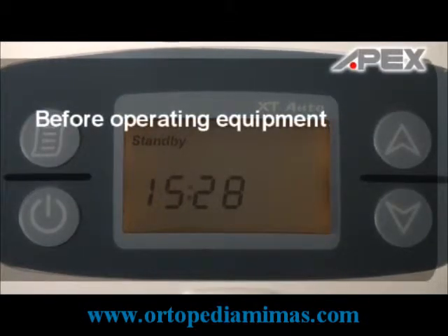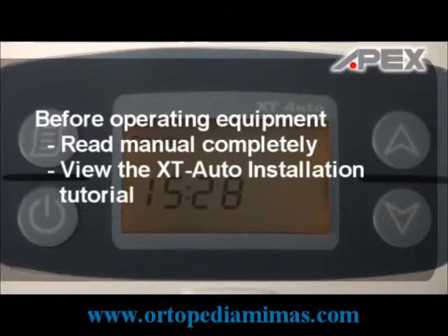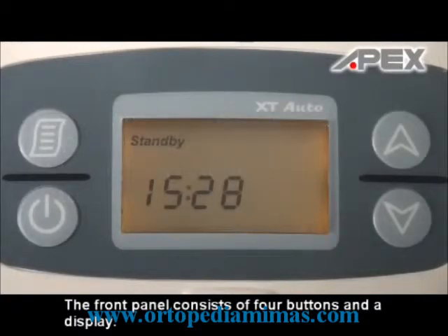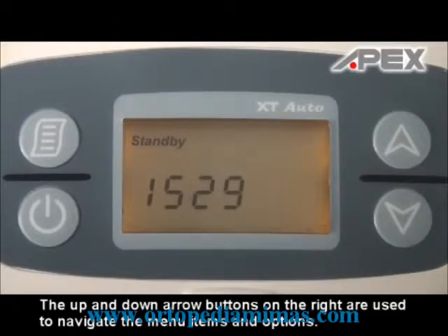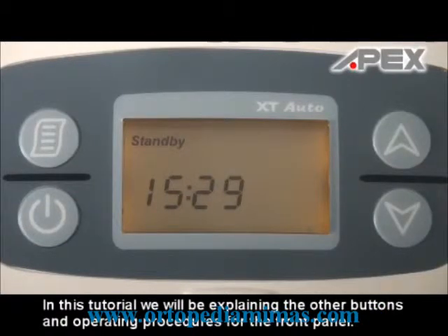As always, before operating the equipment, make sure that you have read the user manual first. Also make sure that you have viewed the XT Auto installation tutorial. The front panel consists of 4 buttons and a display. The button in the upper left-hand corner is the menu button. The lower left button is the start button. The up and down arrows on the right are used to navigate the menu items and options. In previous videos, we mentioned the start button, which is used to start airflow to the face mask. In this tutorial, we will be explaining the other buttons and operating procedures for the front panel.